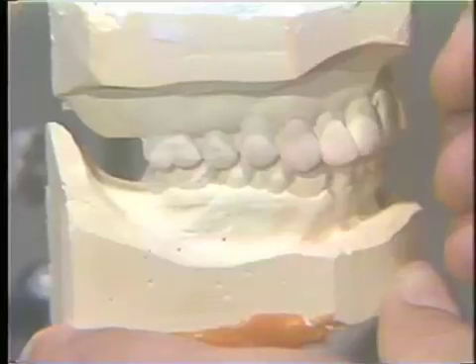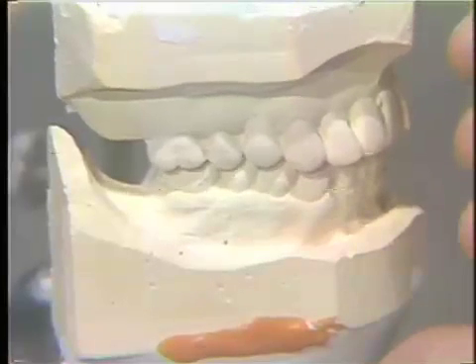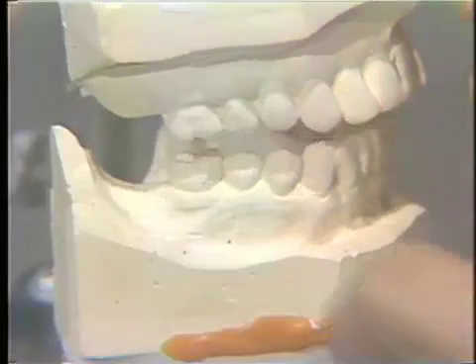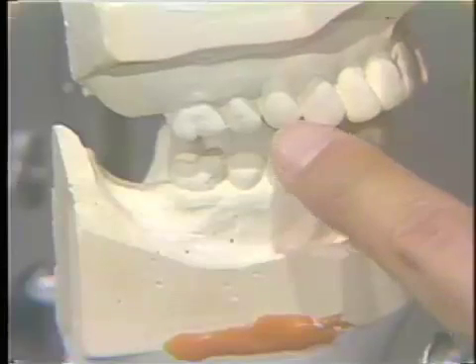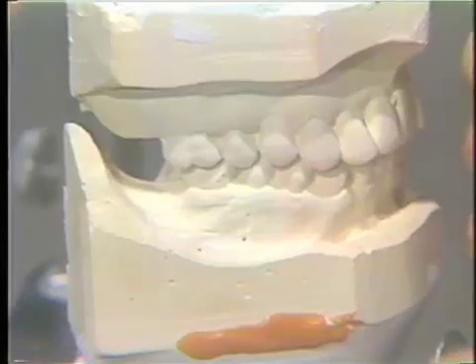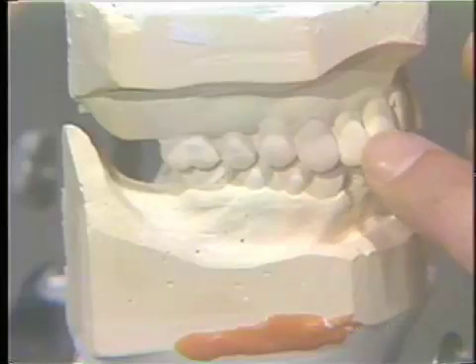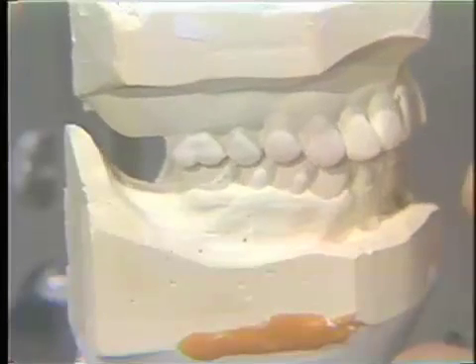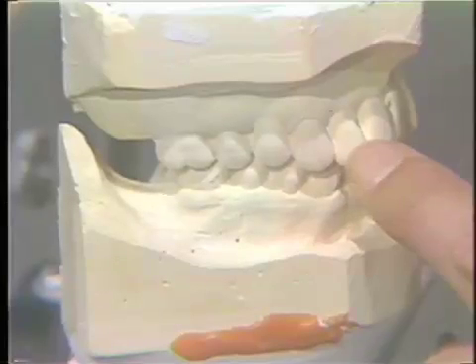From the oral exam, we know that some of the anterior teeth on this patient are mobile. So the analysis of the casts is not going to be completely accurate because we do not have that degree of mobility on the stone cast. The indications are that with the prior bridgework on the patient, there was a slight loss of vertical dimension with restoring the posterior occlusion, and it has caused, at the end of the slide, a quite harsh banging or a horizontal force against the anterior teeth. The brunt of that force is borne by these anterior teeth, and they do show some mobility.